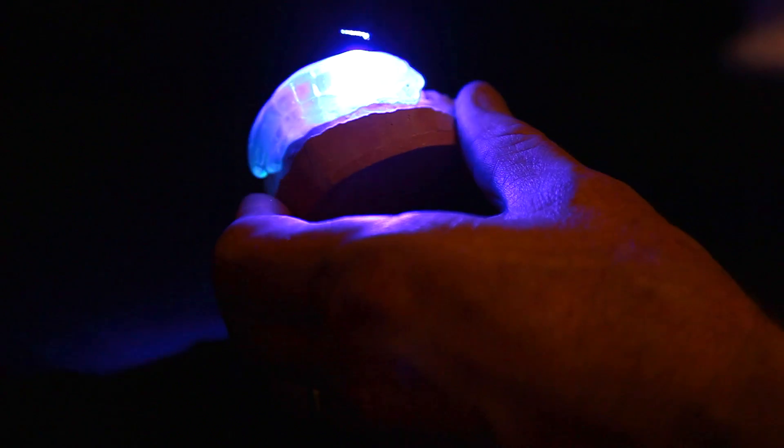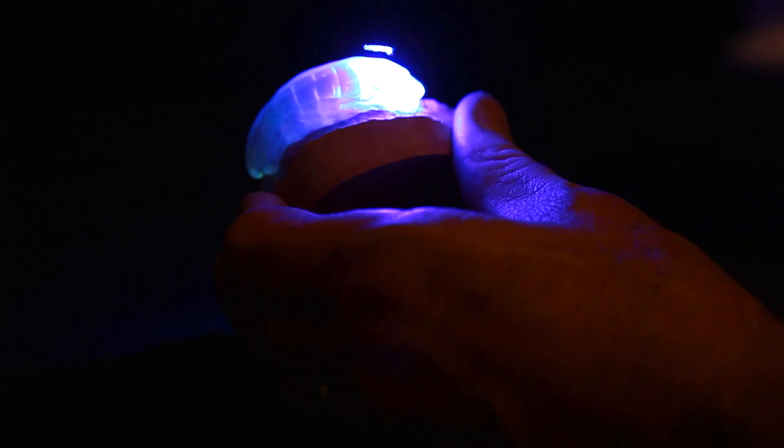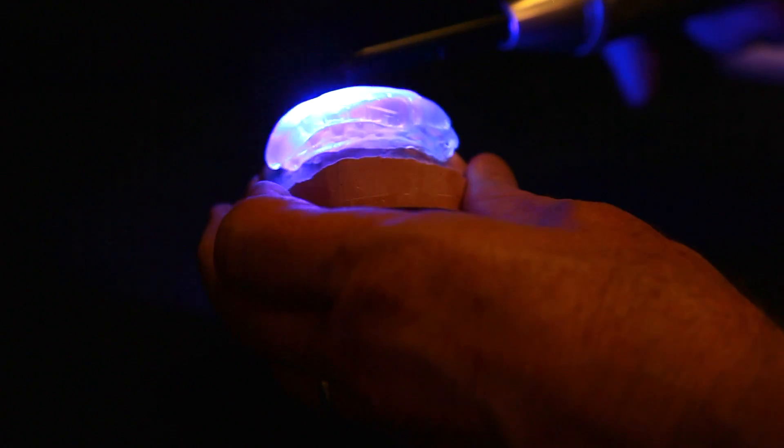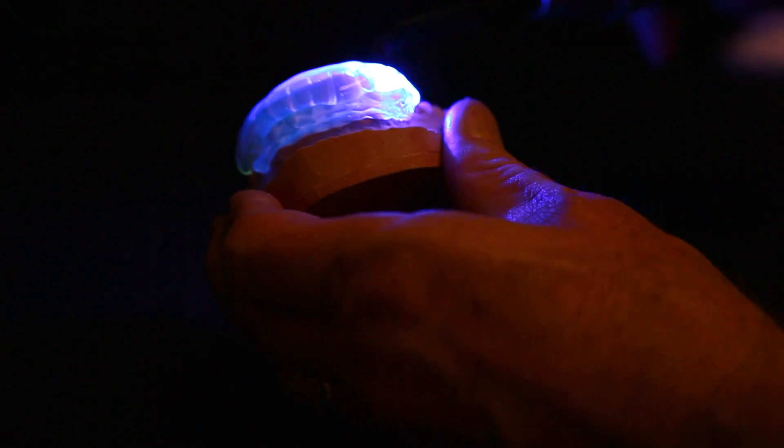It will melt the wax. And how do I know that? I've ruined a few wax-ups in the past and had to redo them. So just do this. Just attack it.